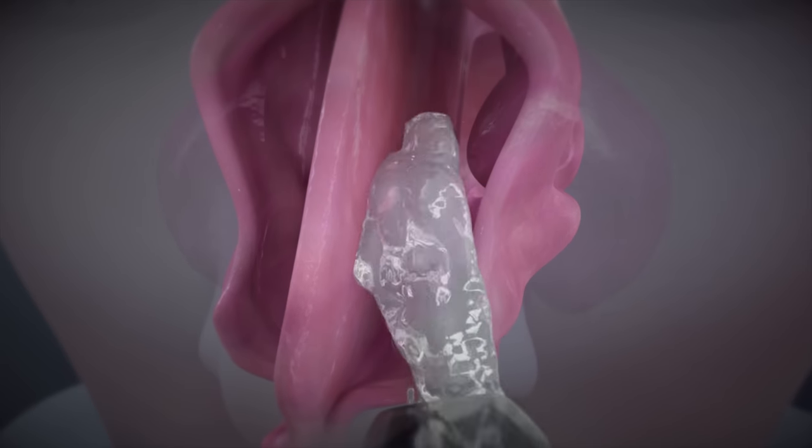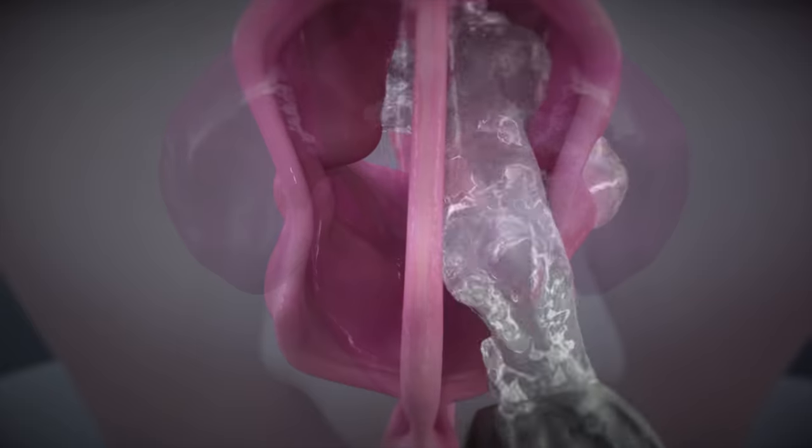There are many different devices available to rinse the nose, but they all essentially work the same way. A salt water mixture is pushed into one nostril and out the other.